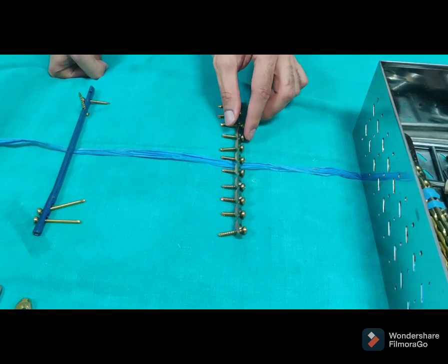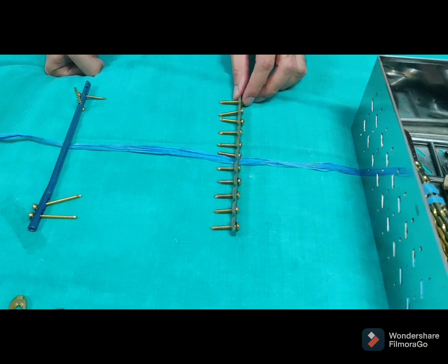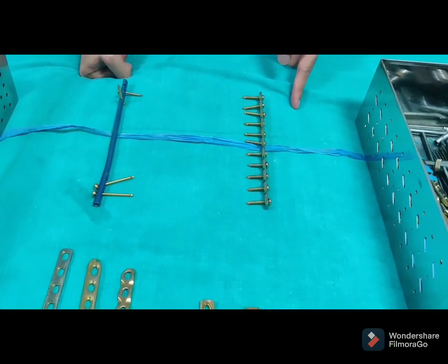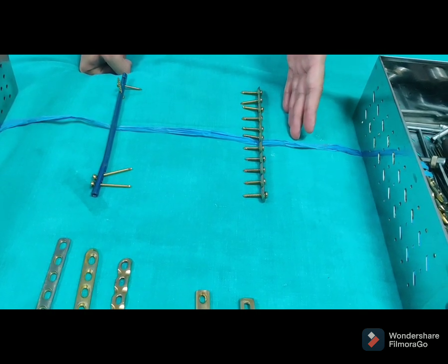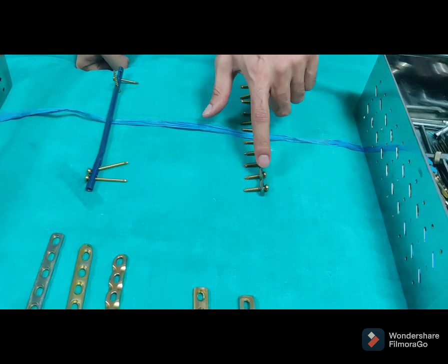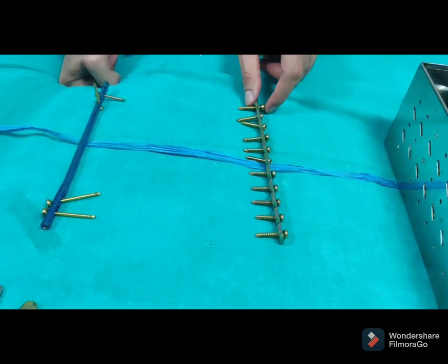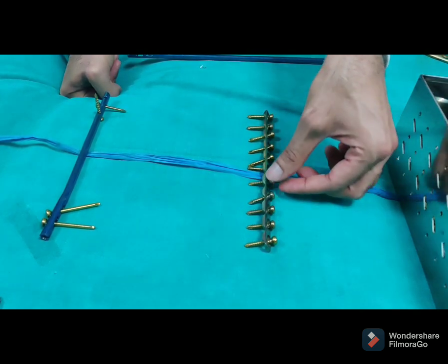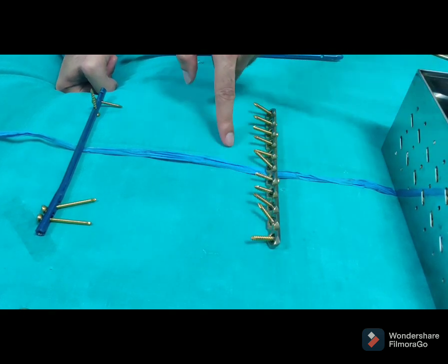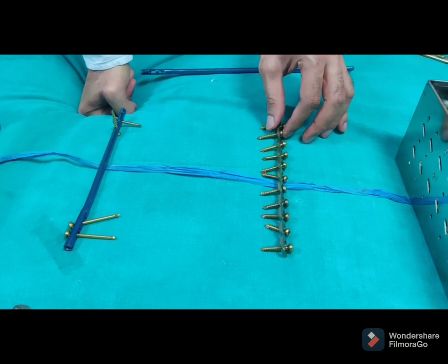First, let's talk about the plate, which is commonly used. The plate is fixed with screws on both sides of the fracture. But to place the plate, we have to open the skin. With open surgery, there is bleeding, pain, and risk of infection. Also, we need many drill holes to put screws through already-fractured bone, which is a big operation. When the plate is removed, the bone is weakened and you must protect your arm. This is not a good option.